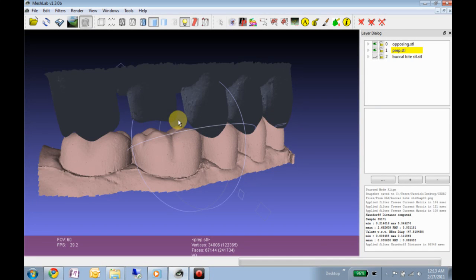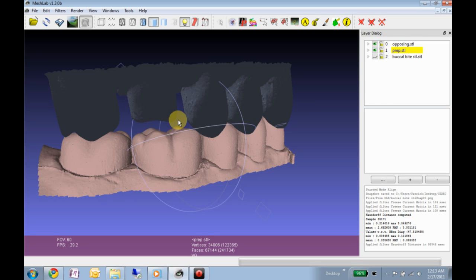Alright, now that we have our two meshes registered into MIP, if you will, the next thing as an astute lab technician or person designing a restoration is going to tap around and find all the contacts in MIP.